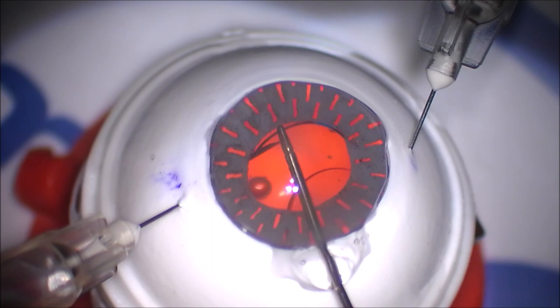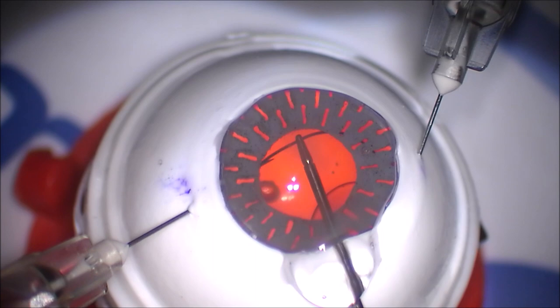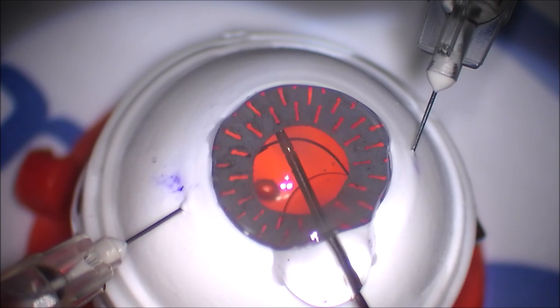But I do have one final point of concern. And with this technique, you have to have both needles pre-placed within the sclera. And I do have some reservations of doing that. I've never left the needles like this that has not been cannulated with the haptic, just free floating with the tip, the pointed sharp tip, sitting in the vitreous space. You'd have to have both needles placed.